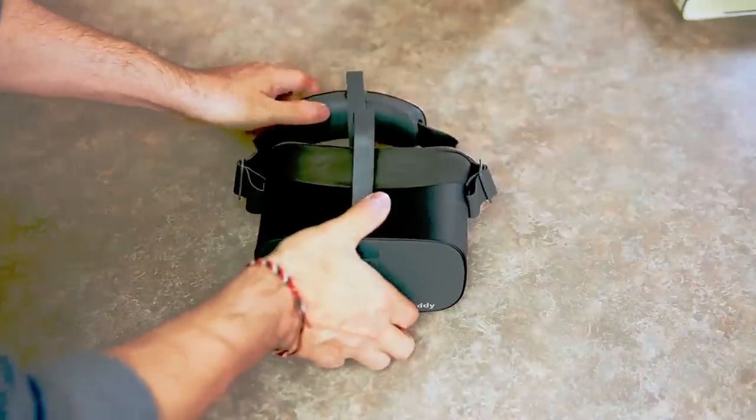Talking about quality, you can stream 4K full HD into this headset, which is pretty cool. Let's quickly blast through everything you get in the box if you were to buy the Vision Buddy, then we'll talk about the hardware, and then we'll do some demonstrations of the Vision Buddy in action.